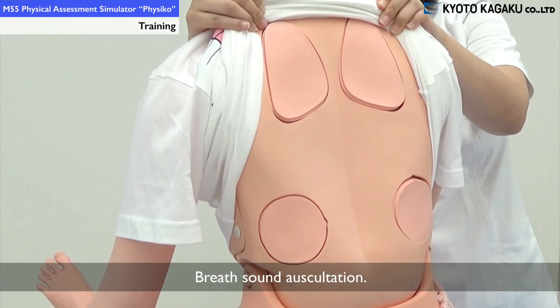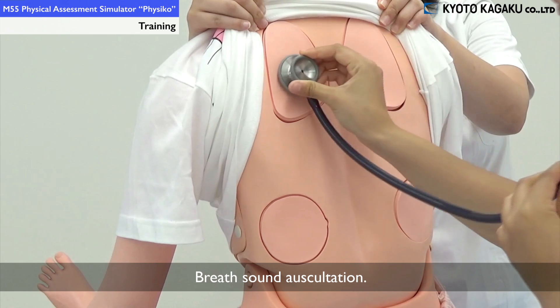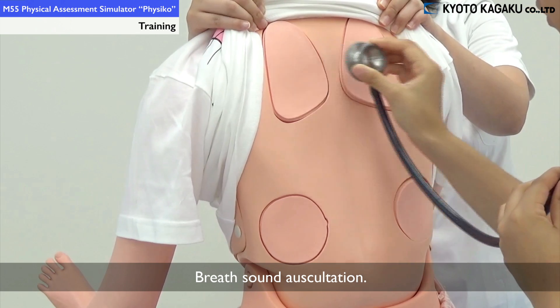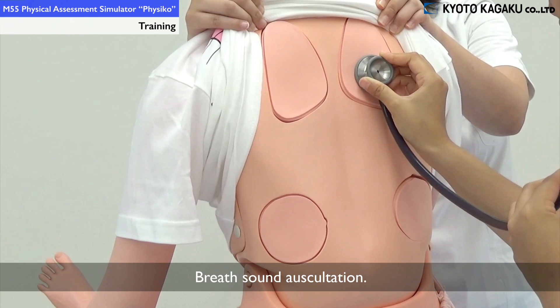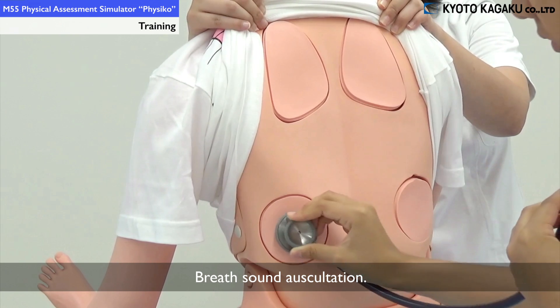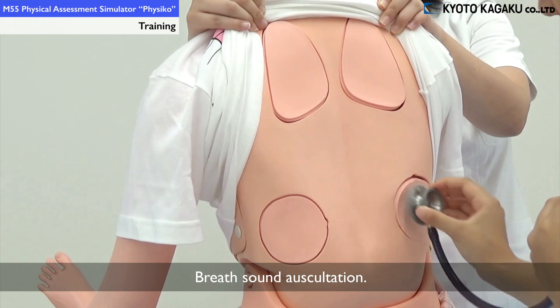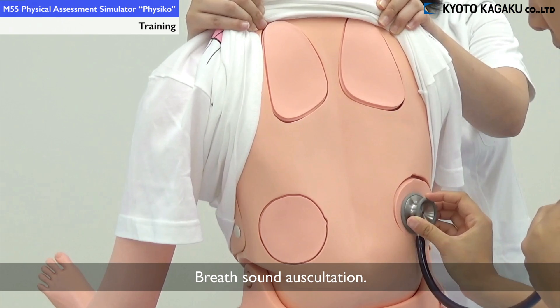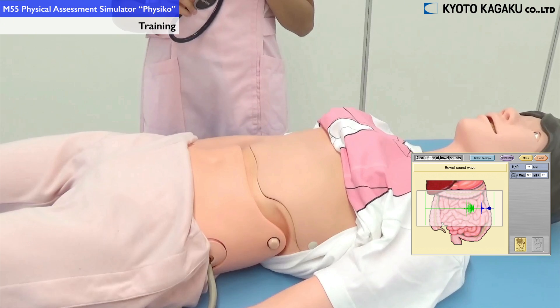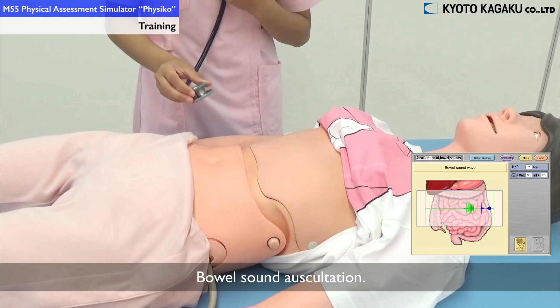It is possible to train lung auscultation from both the anterior and posterior positions. You can also examine bowel sounds.